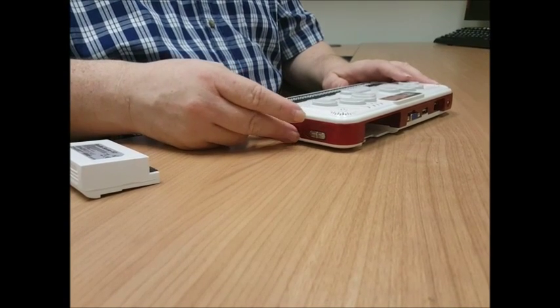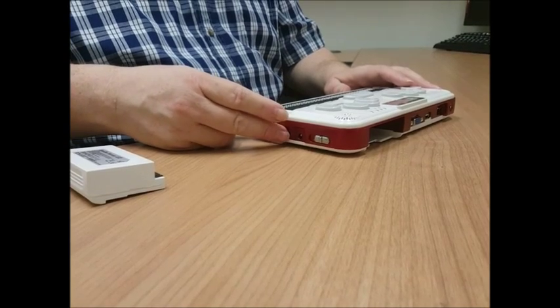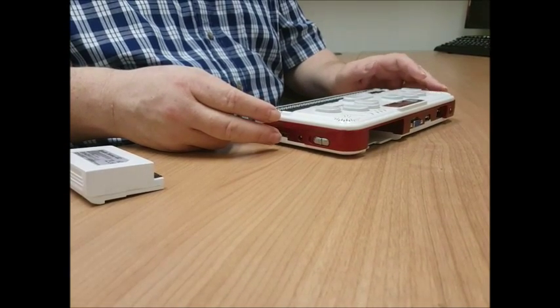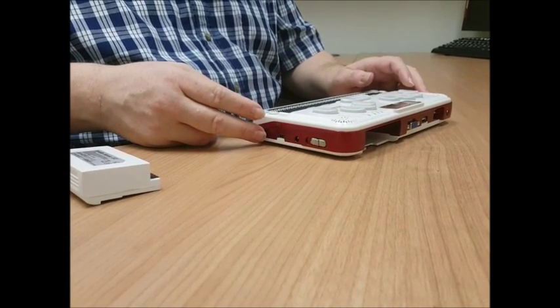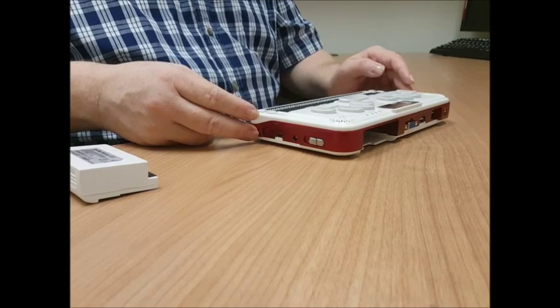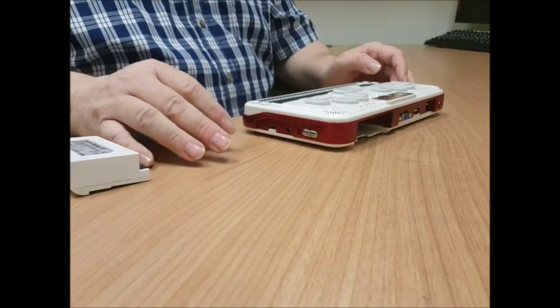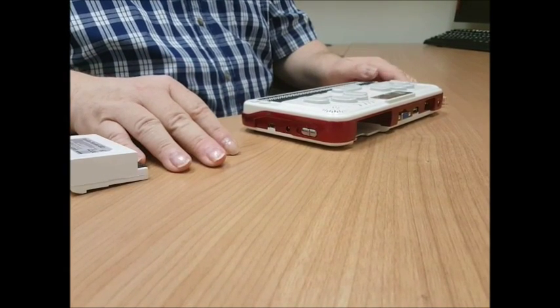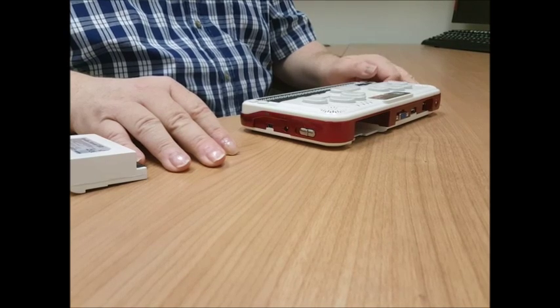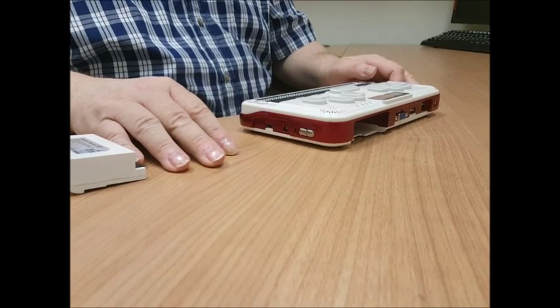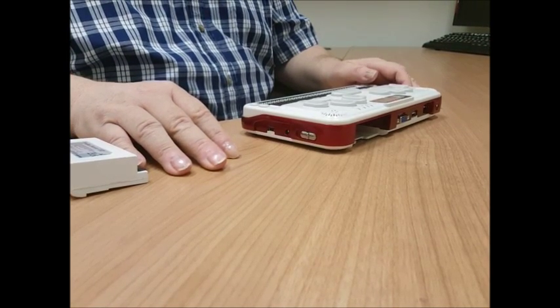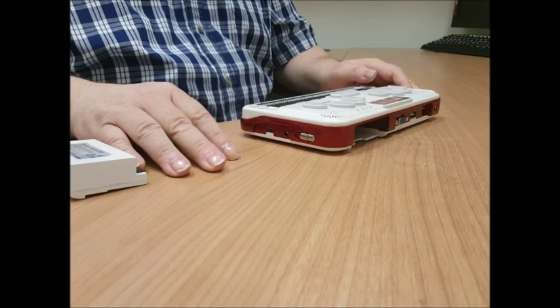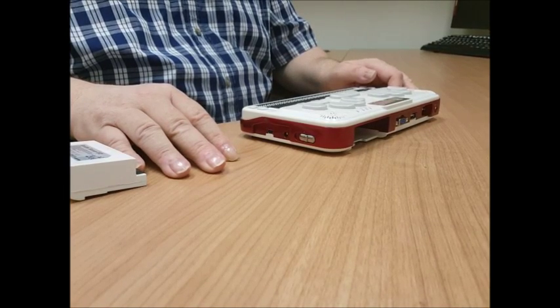If I come a little bit ahead of that, we have the AC connector port. And then even closer to the front is the USB port that would be used to come from the computer into this device. And what that lets you do is share your flash disk with the computer or use the Braille display with the computer.